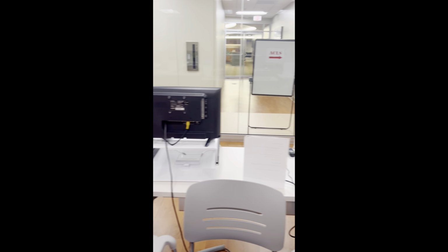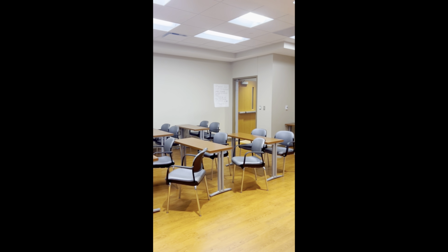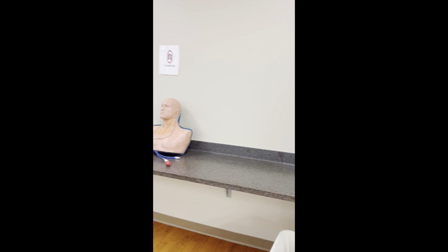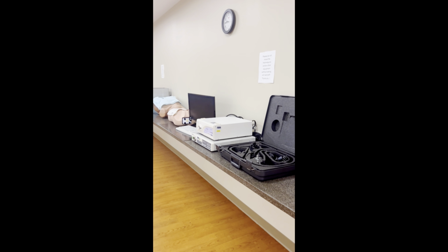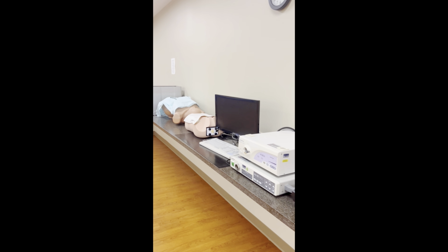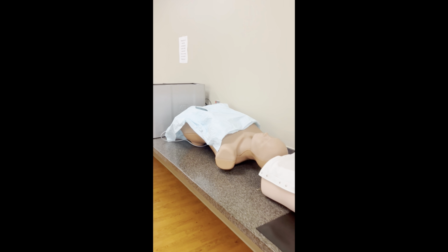And this room is the main event. This is the simulation lab and classroom, where most of the simulations take place, from suture training to nursing orientation to cricothyroidotomies. Literally everything pretty much takes place in this room. So that's the classroom there. And I will turn around to the bigger side of the room, which is the simulation lab. As you can see, our central line task trainer is there, and I'm showing you some of the other task trainers that we have as well for like endoscopies, ultrasounds, you name it.